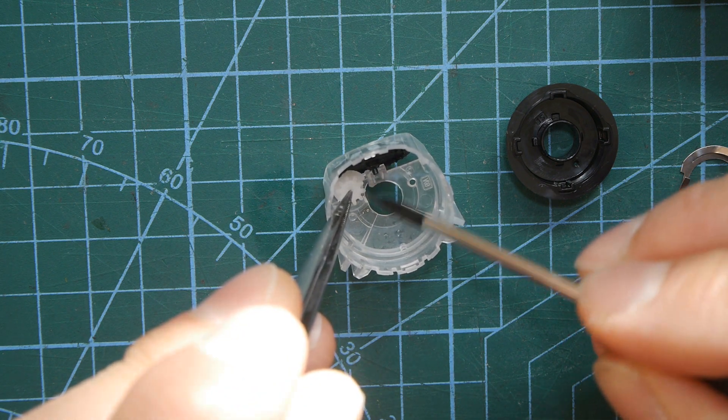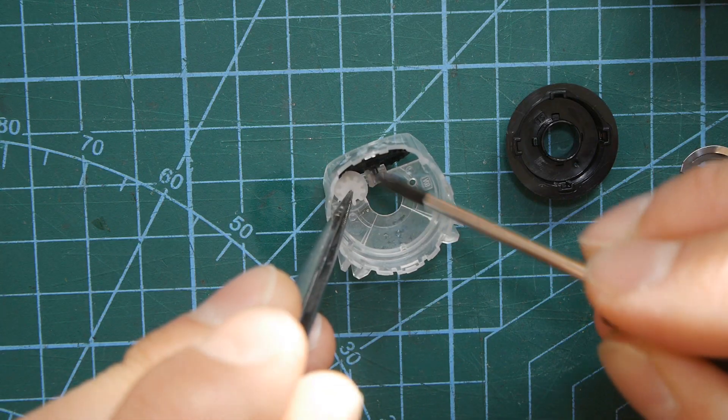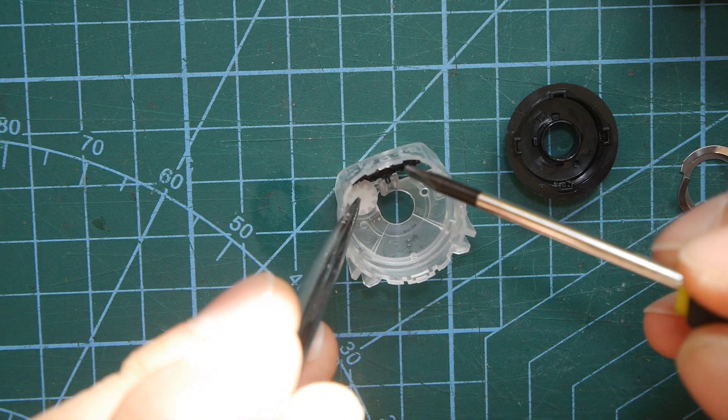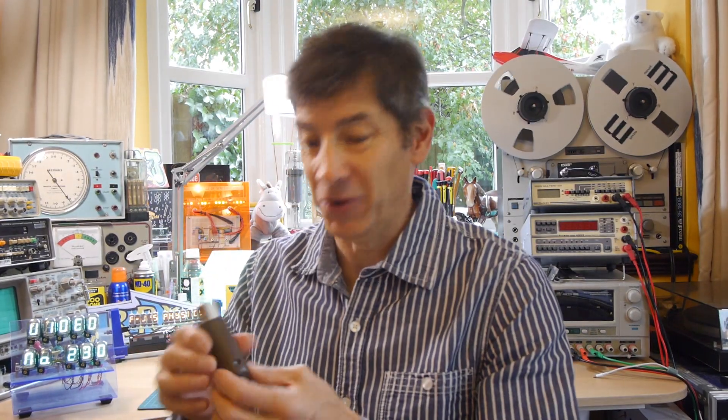But if you were to take the counter out, reset it back to its highest number, put it back in and swap the cartridges, get rid of the old one and put a new one in, maybe then you'll have an inhaler that works perfectly well with its counter reset. Again I'm not recommending that you do that but from a mechanical and physics point of view I think that's quite an interesting thought.